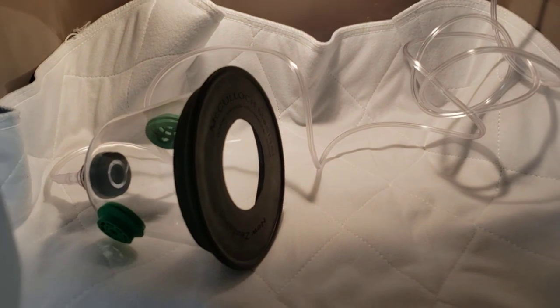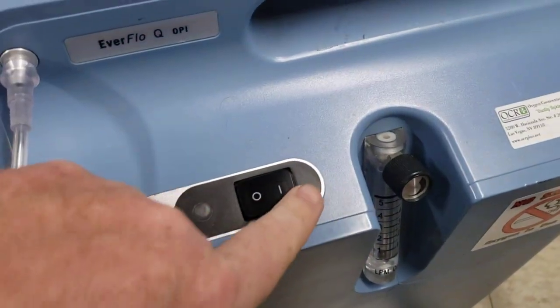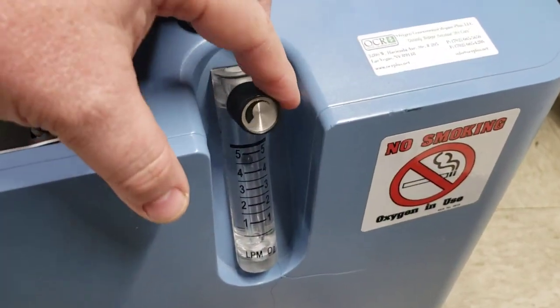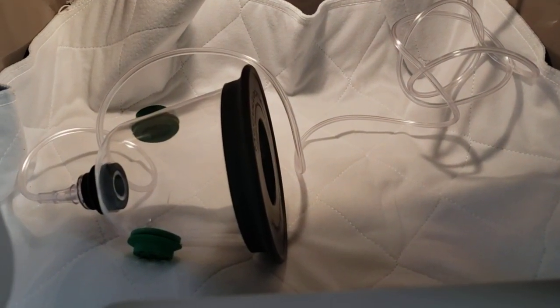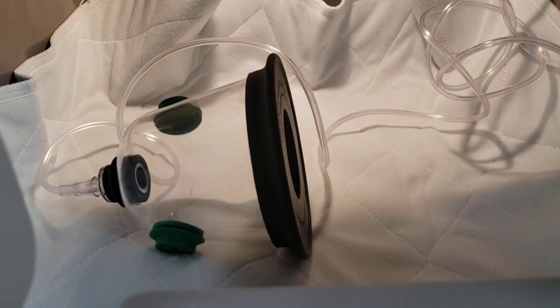What's going to happen now is we've got an animal that is in intensive care that we can put inside of here. We can get them inside of this diaphragm, much like they would do at a veterinarian's office. You can get that animal underneath oxygen. When you go to turn the concentrator on, go ahead and hit the button here. You're going to hear an alarm, you're going to see indicator lights light up, then you're going to see a green light, which means you're good to go. I generally try to dial that in to about three liters a minute on the dial — that's where I recommend starting. You are pumping oxygen directly into that cone, which is a critical life-saving component of this unit because the animal's temperature is regulated, you're keeping their core body temperature where it needs to be, and you're also supplying life-saving oxygen for a neonate that's in respiratory distress.